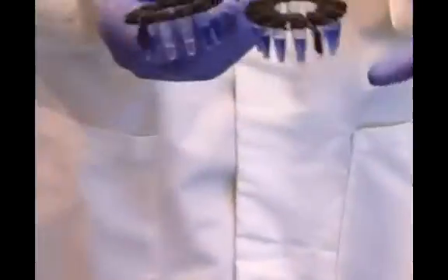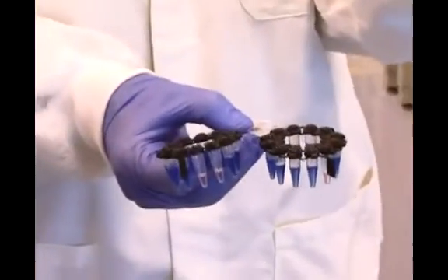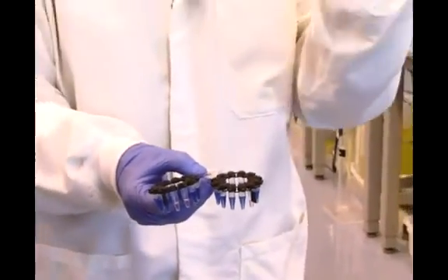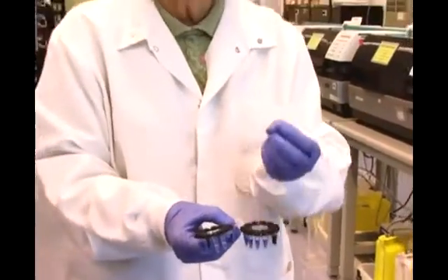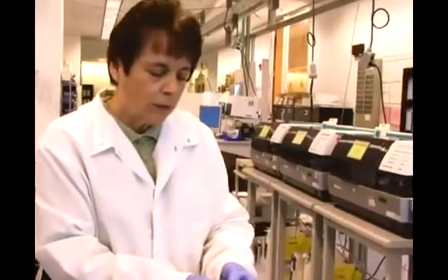Then the principle of the test is we're going to take a little virus RNA, we're going to put a probe in there like a lock and key to see if it's there. We're going to hook it up, and then we're going to extract it and turn it into DNA.